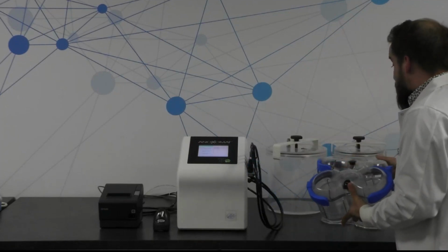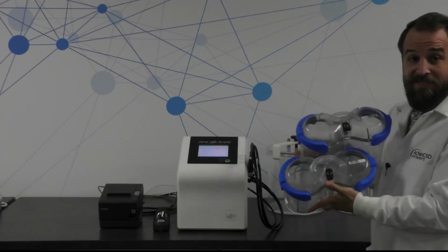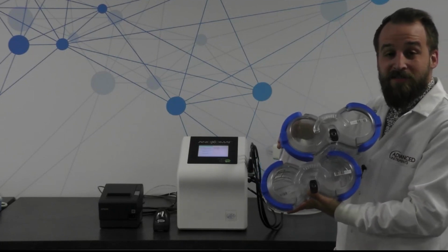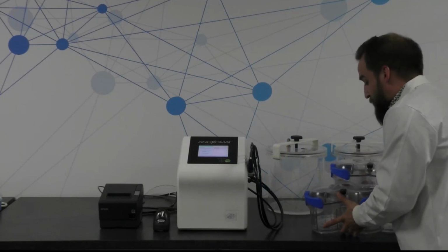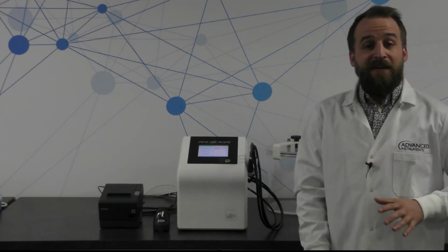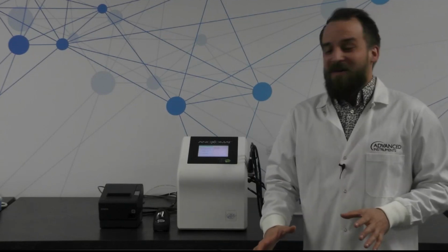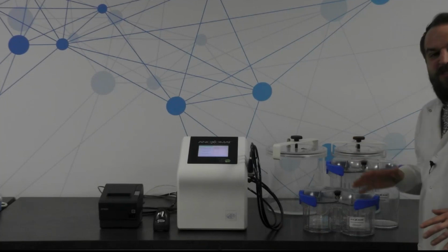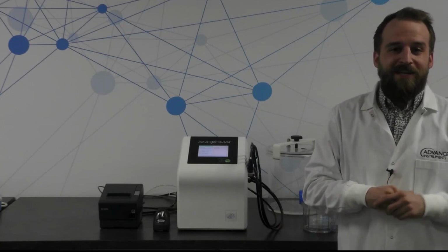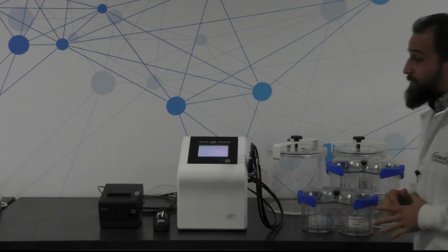And what's even cooler about it is, in deference to these larger jars, you can fit these together like little puzzle pieces. So I can go ahead and take these two little peanut-shaped jars and fit them together like puzzle pieces. If you can imagine what your incubator looks like right now, if you're sitting on the bench in the laboratory, you can even look over and look at it. It's probably a mess of towers and stacks of plates waiting to be read or incubating. So this really helps you reduce the amount of space that you take up with your anaerobic jars and leave some room for other things that you'll have to eventually go in and check up on in your busy workflow. So that's what we use to accommodate as far as jars.